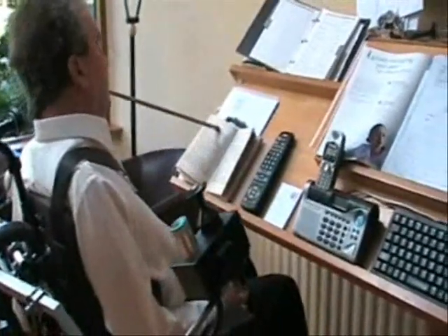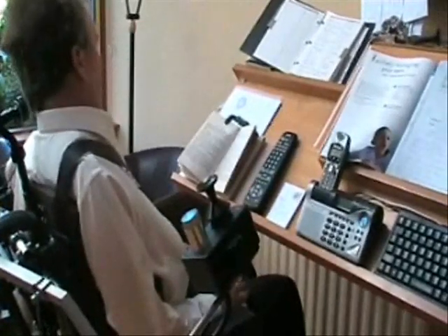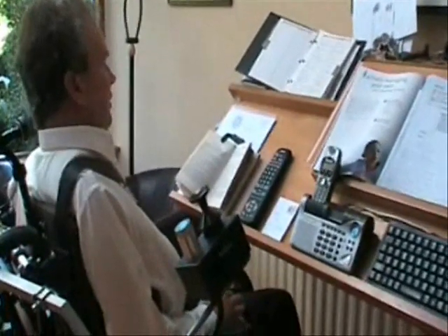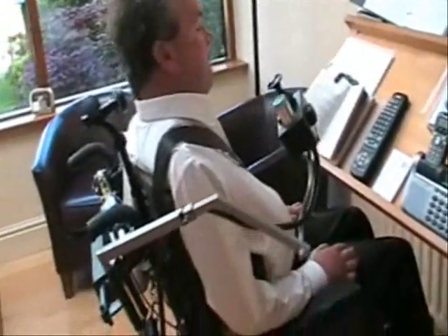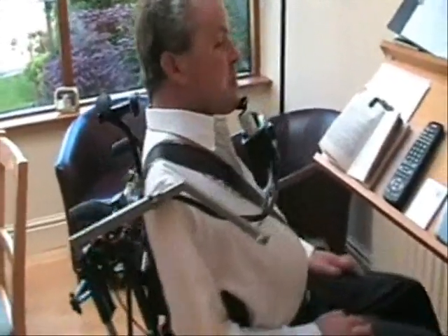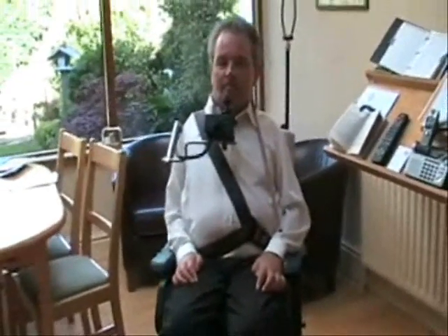So now I have a book with the chin piece completely moved out of the way, or to get to the remote control or anything like that. The problem is now solved and it should mean an improvement for my neck. That's about it.